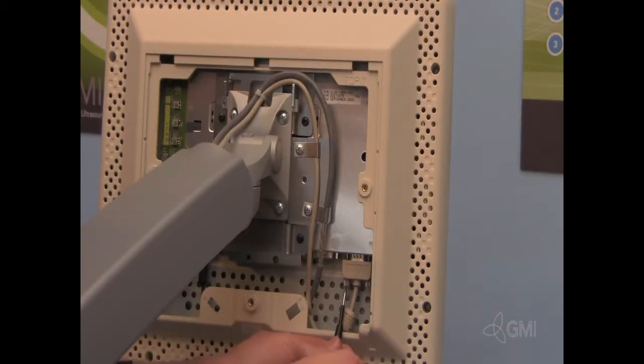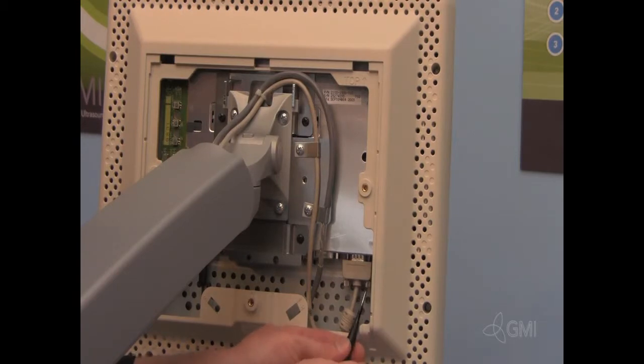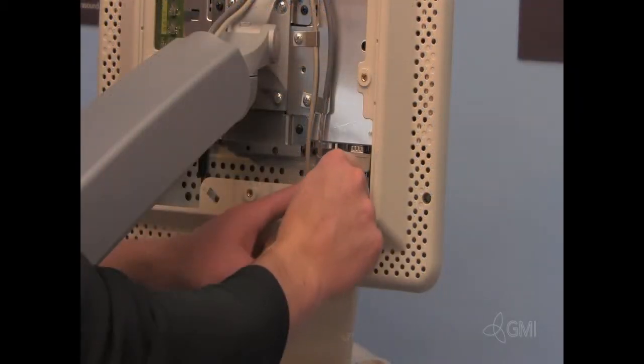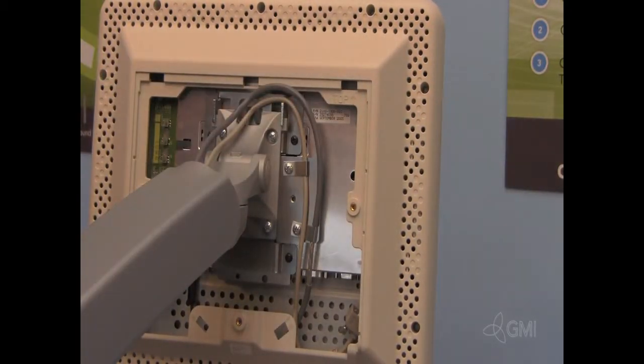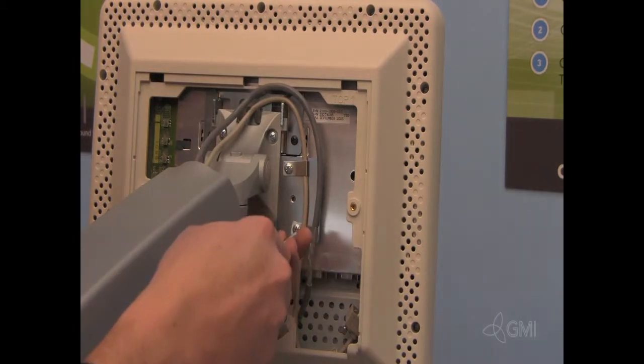Remove video connections as well as power connections. Unscrew the cable clamps.